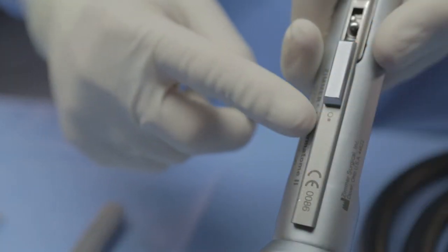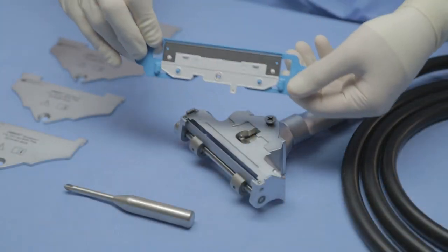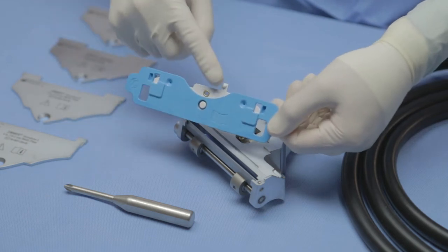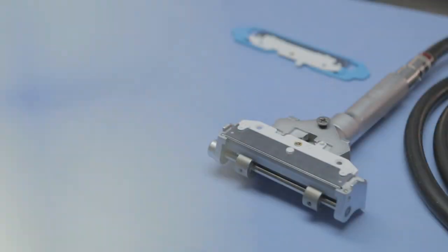Ensure throttle is in safe position. Always use a new blade for each procedure. The blade key will mate with a notch in the handpiece when assembled correctly. The legacy Zimmer blades and competitive blades must not be used with the Zimmer Air Dermatome 2 and the Zimmer Air Dermatome 2 blades will not work in other Zimmer Dermatomes.